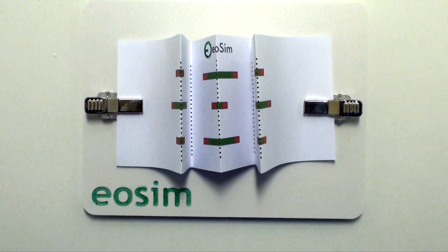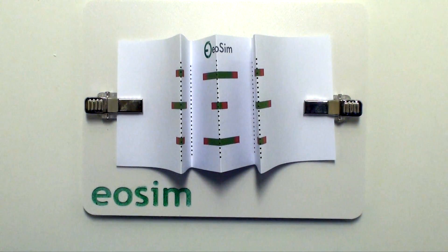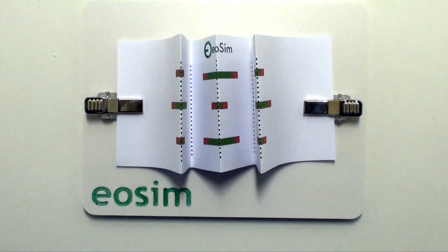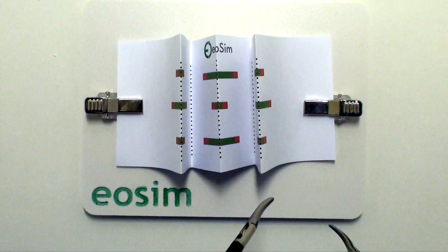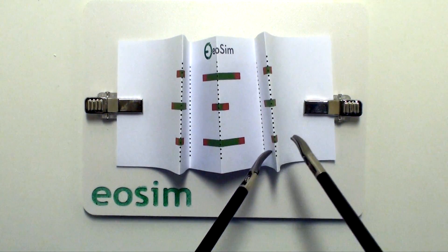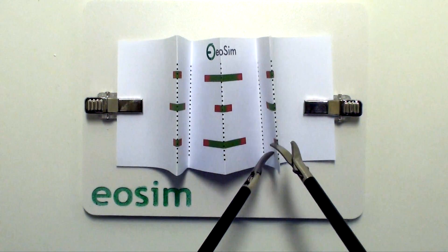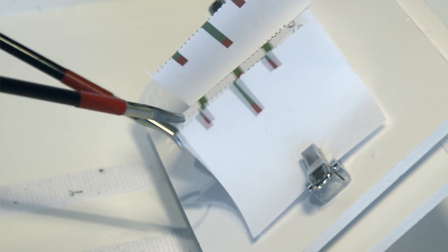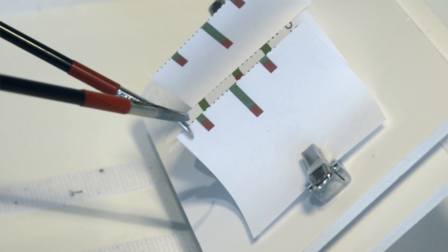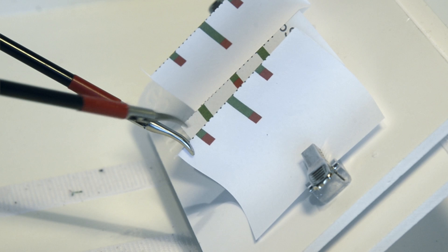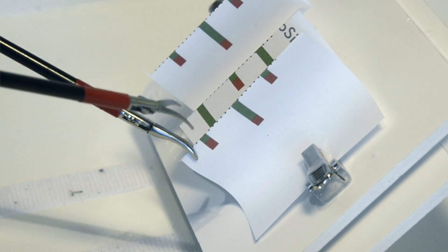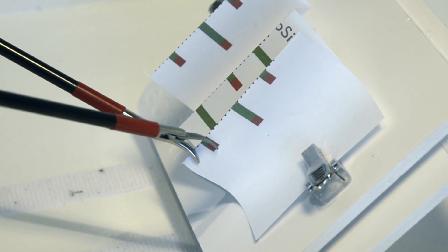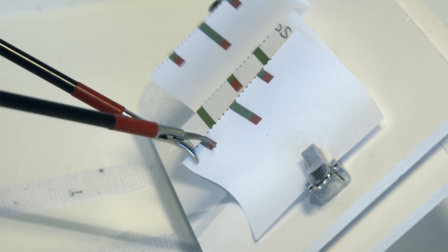Your aim is to take the laparoscopic scissors in whichever hand is your dominant hand and to cut all the way through the green color and into the red marked area, without cutting outside the lines and without cutting it too short.